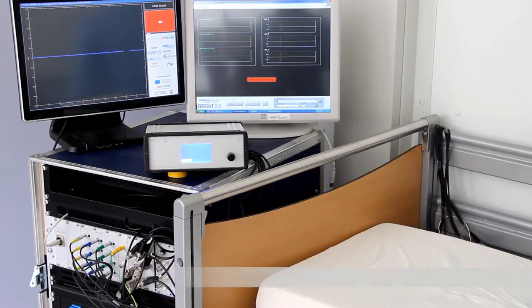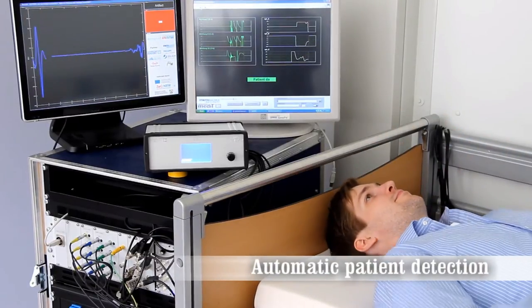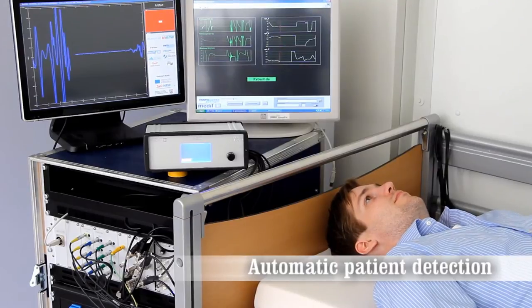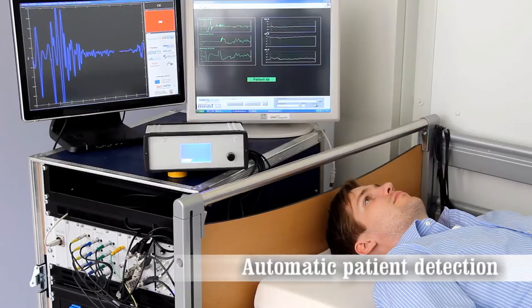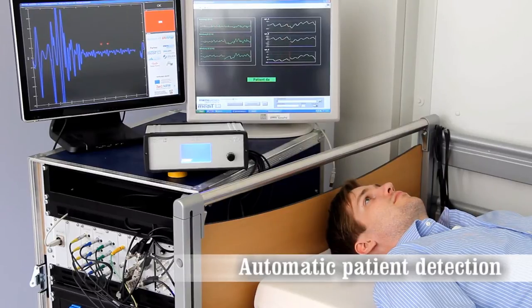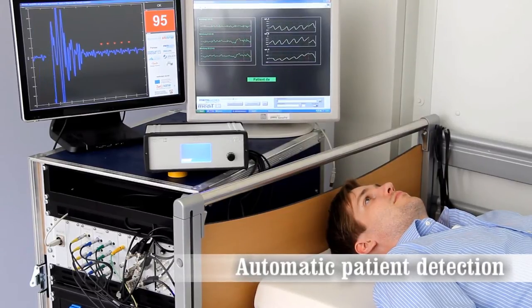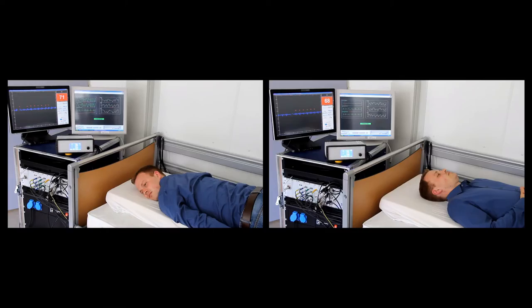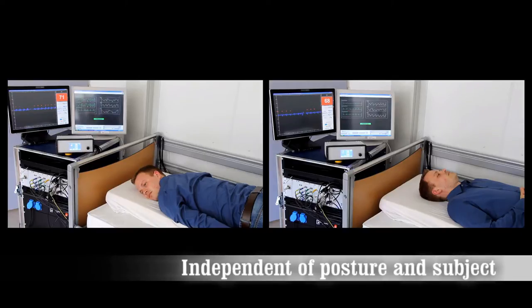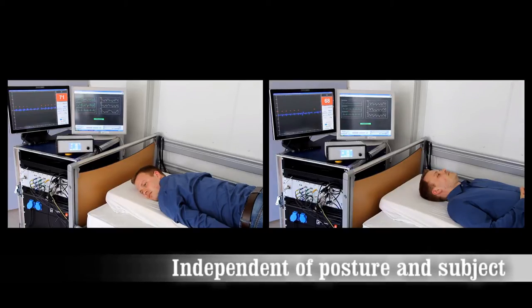First, the bed automatically detects the presence of a person and starts measuring heart rate. We can see that when a patient enters the bed, heartbeats are detected and the computed heart rates are shown without any further delay. This works independently of the subject and his or her posture or position in bed.